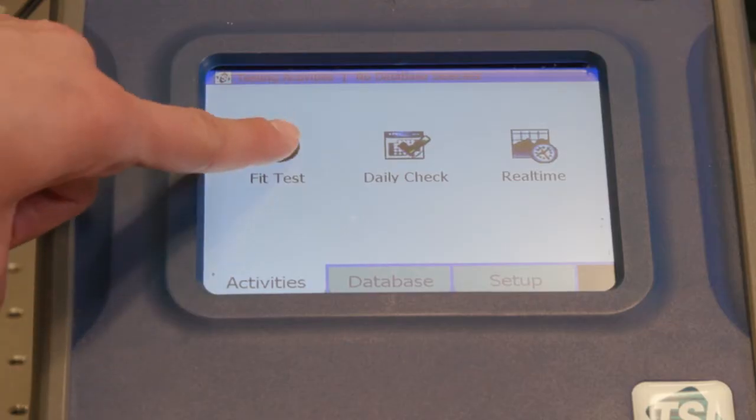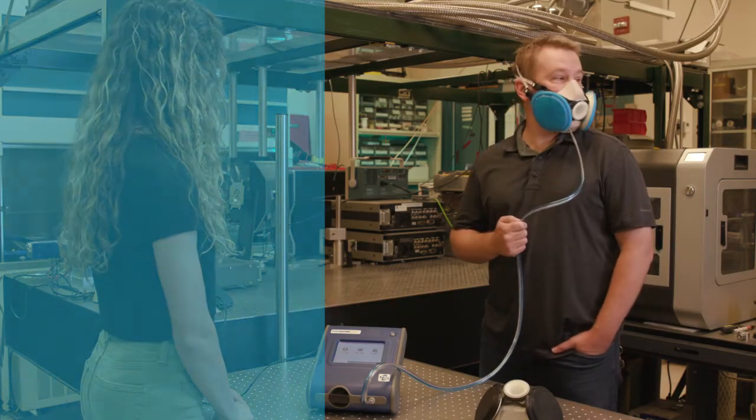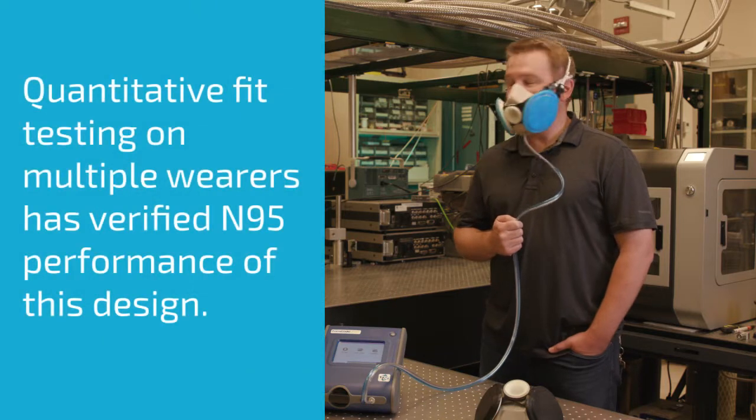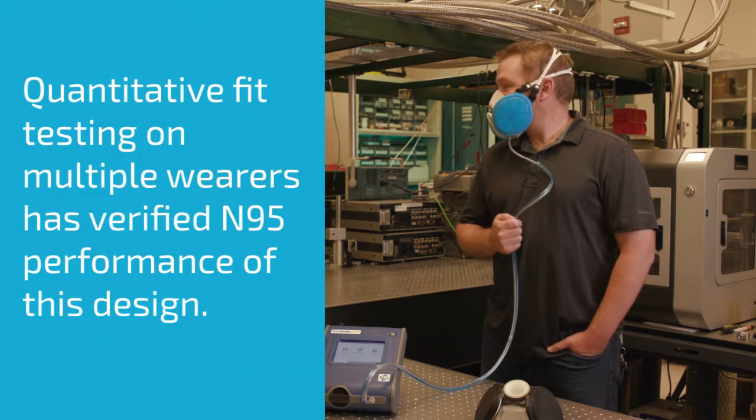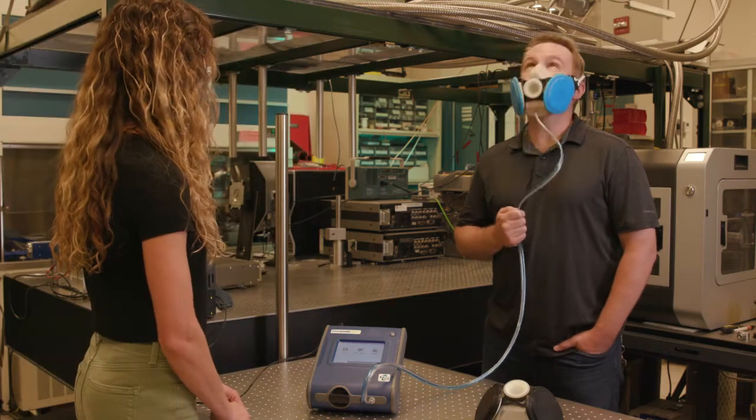Ours is helping look at the issues we're seeing with those industrial masks and really gearing it towards our medical community, ensuring that the features we've developed have them in mind.